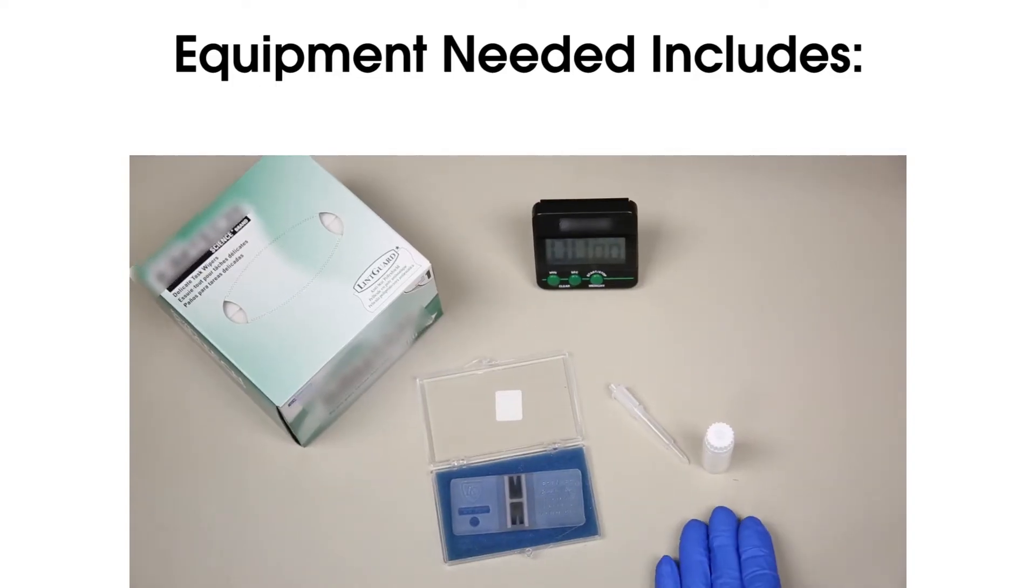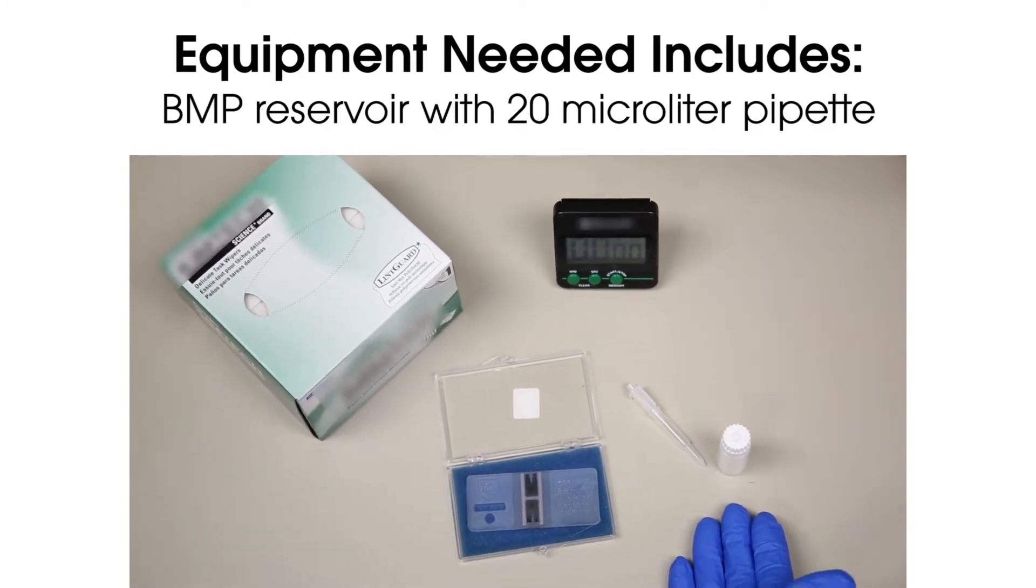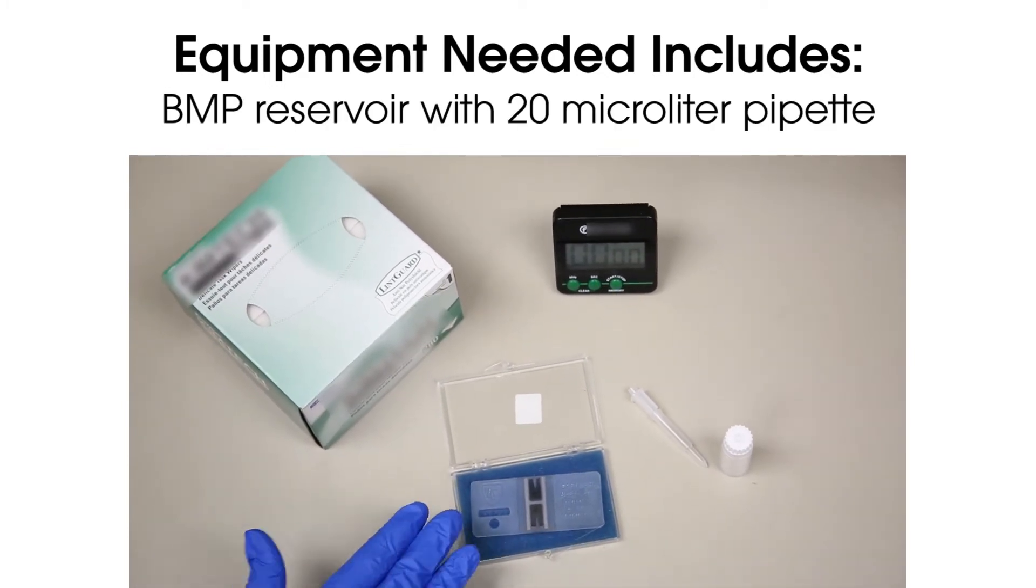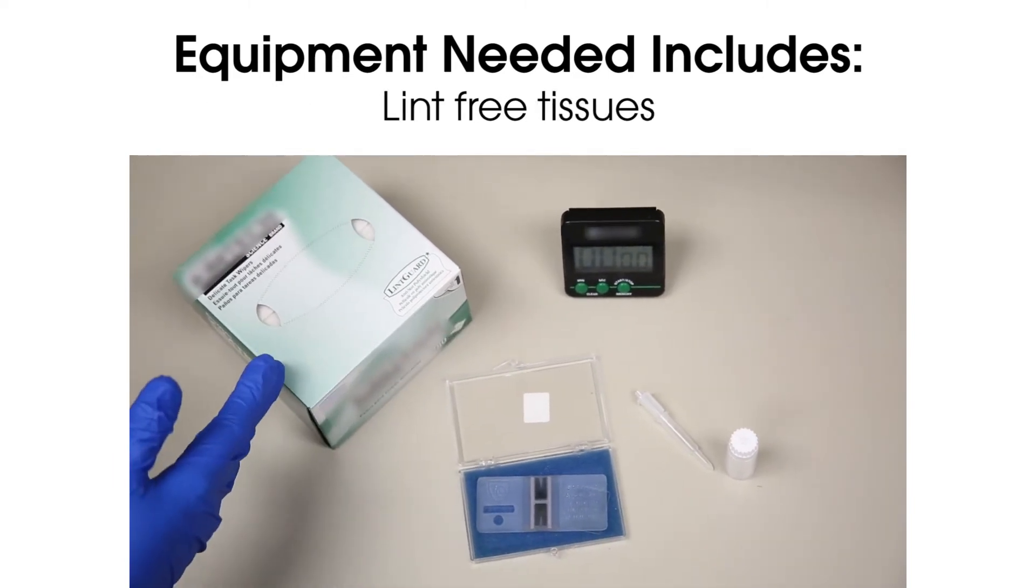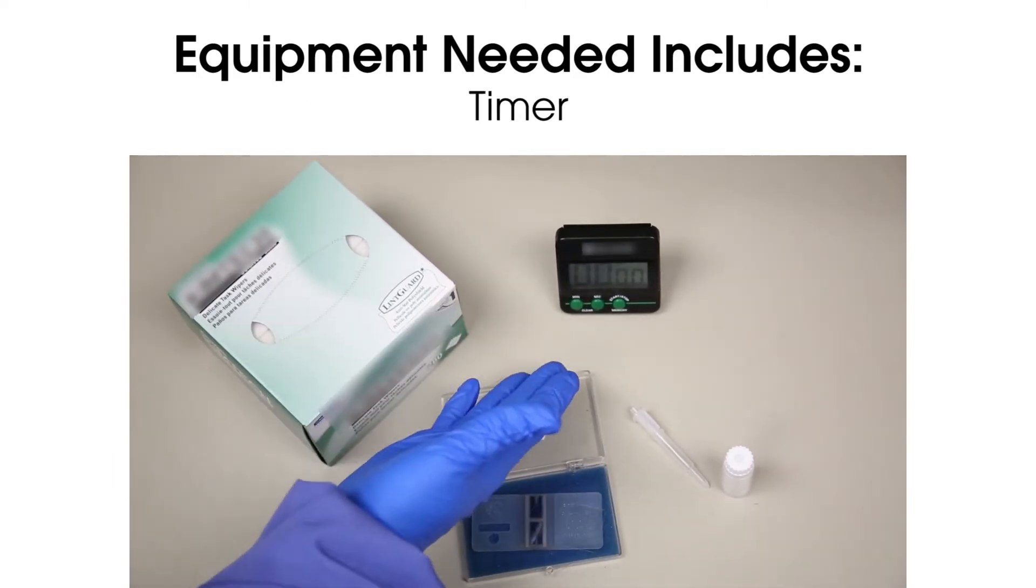Equipment needed for this procedure includes BMP reservoir with a 20 microliter pipet, hemocytometer with cover glass, lint-free tissues, and a timer.